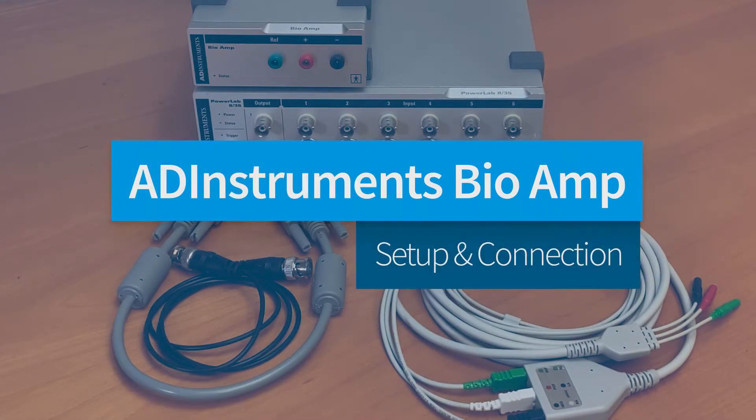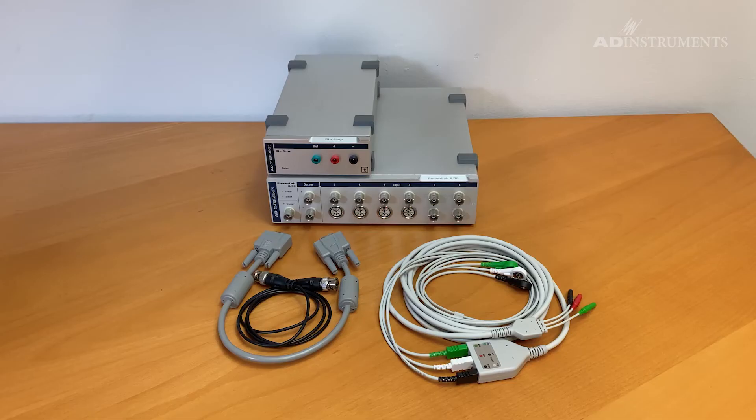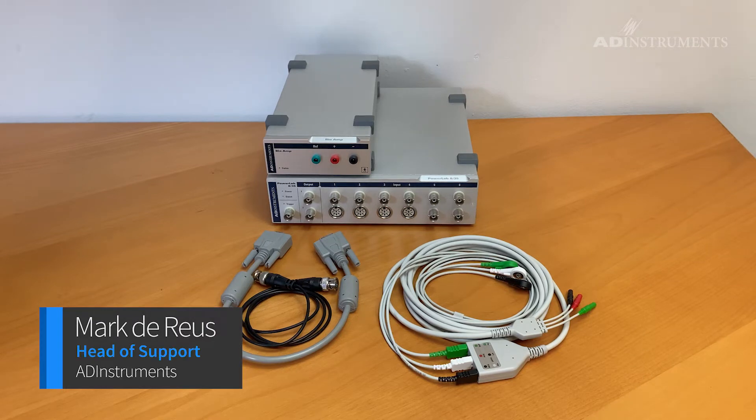This video will demonstrate how to connect and set up the bioamp with a power lab for recording physiological signals such as ECG, EMG or EEG.